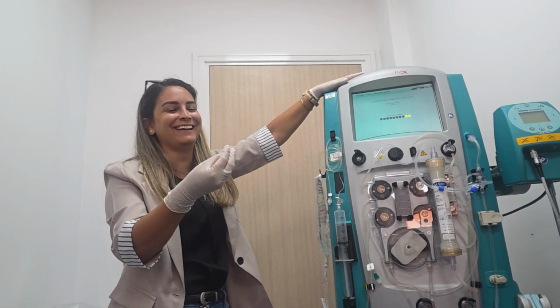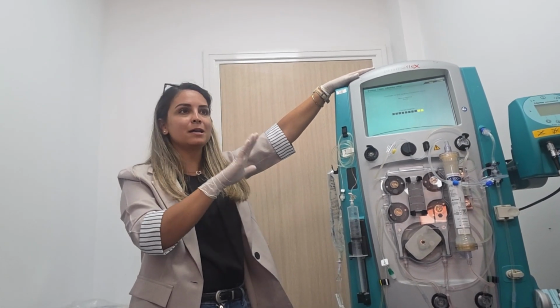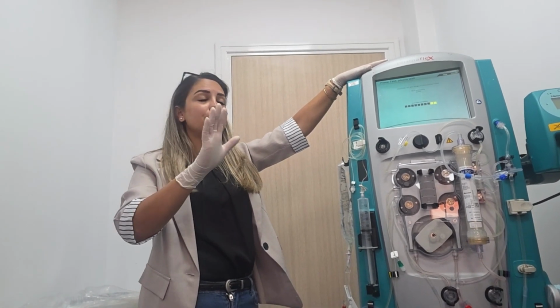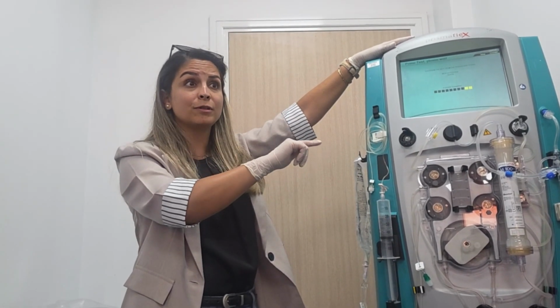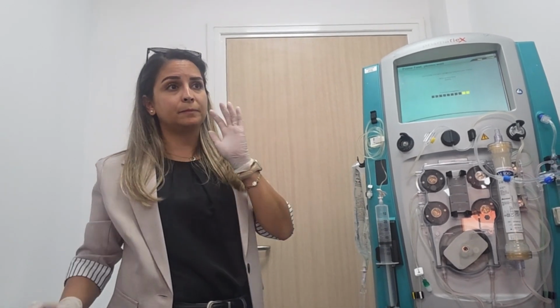Turn off, turn on, there is a problem. You send the patient to the OR, maybe more than 2 hours, 3 hours. Do saline recirculation. Once the 2 hours are finished, you have to do a reprime. There is a reprime option on the machine. Do the reprime and keep the machine ready. Prime with the new saline.